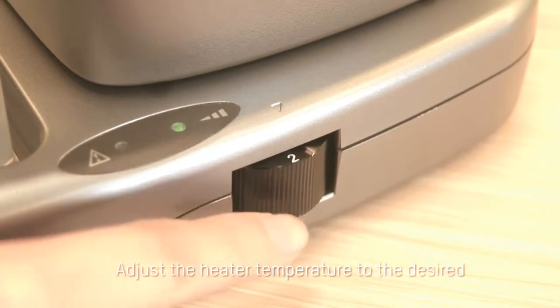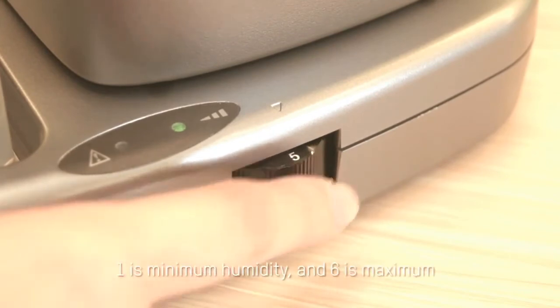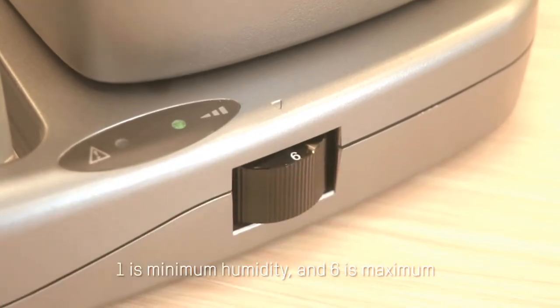Adjust the heater temperature to the desired setting by using the control knob. One is minimum humidity and six is maximum.